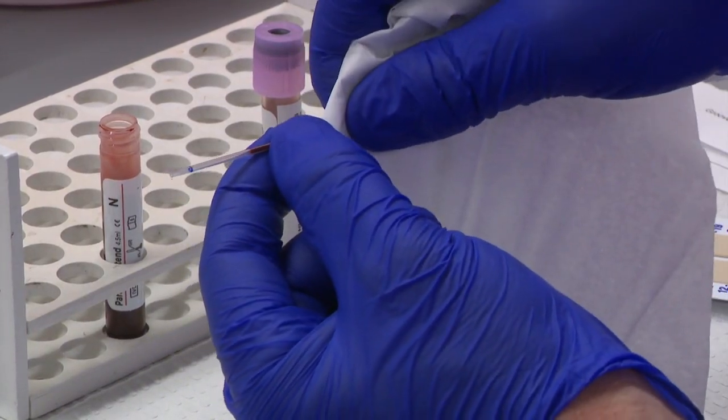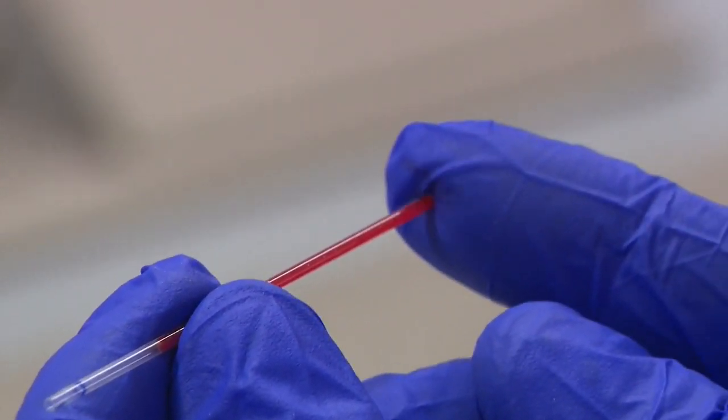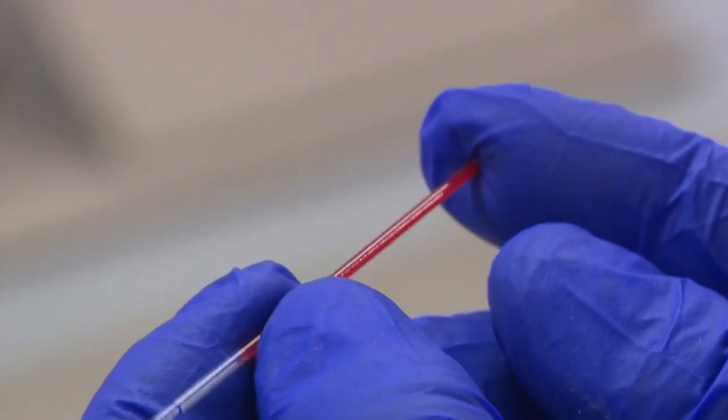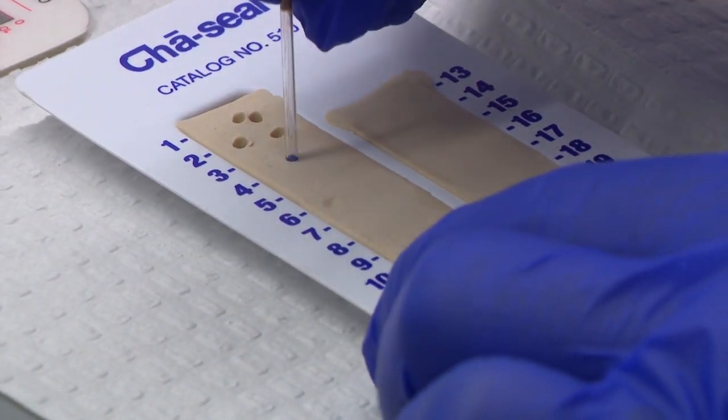Once your tube is two-thirds full, wipe off the wet end of the tube with a Kleenex and clay the dry end of the tube by placing your finger over the wet end. Holding the tube vertically, place the dry end of the tube in the clay block.